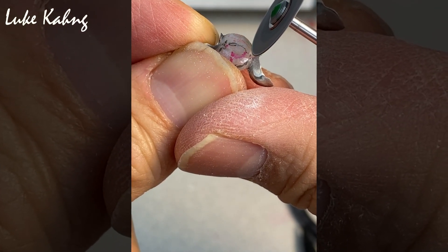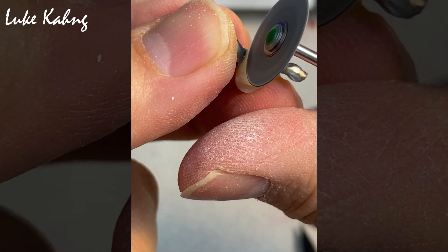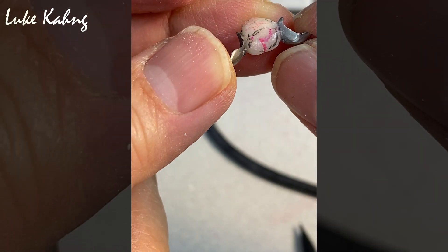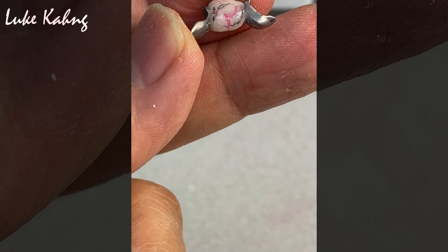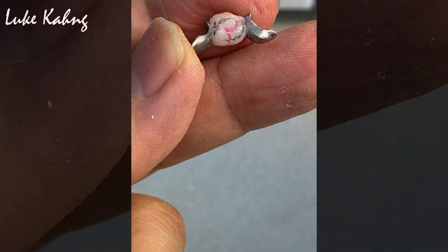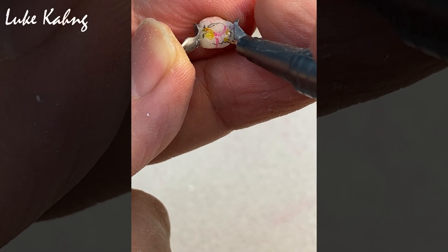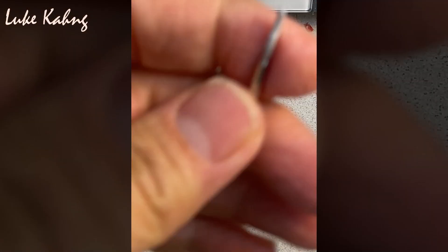This one is the cut line. Here. I have to bend a little more. The other issue is more this area which is too high. It's really high right now. So I have to bend down. It is not occlusion.